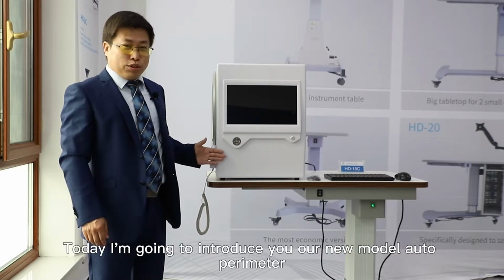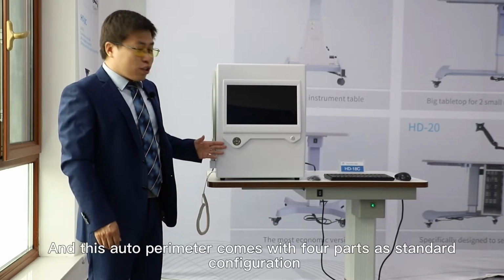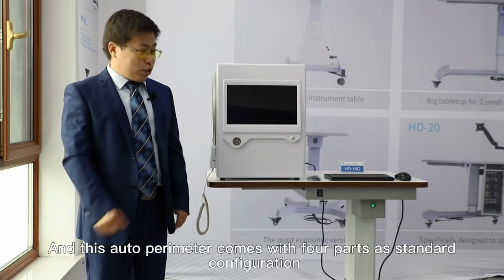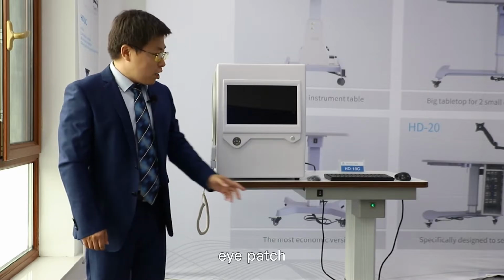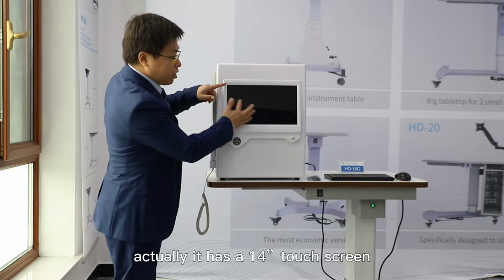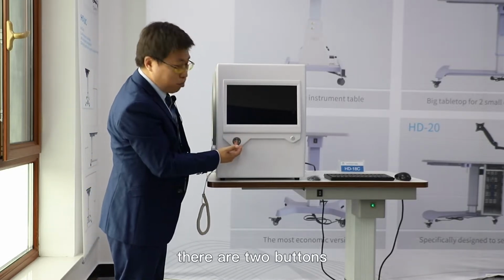Today I'm going to introduce you to our new model, the auto perimeter. This auto perimeter comes with 4 parts as standard configuration: a mouse and a keyboard, an eye patch, and also the whole machine. As you can see, it has a 14-inch touch screen, and at the bottom, there are 2 buttons.